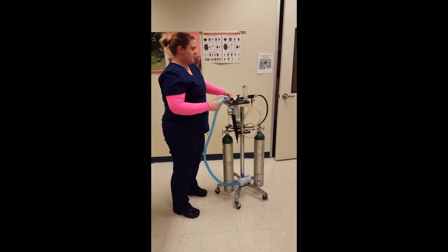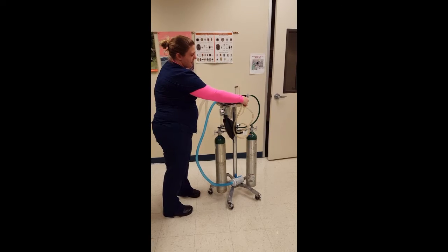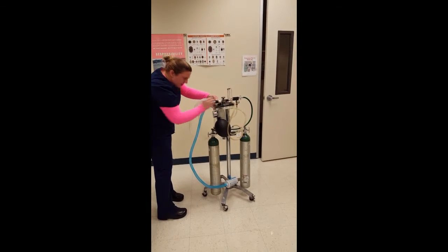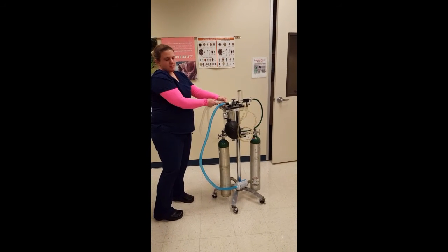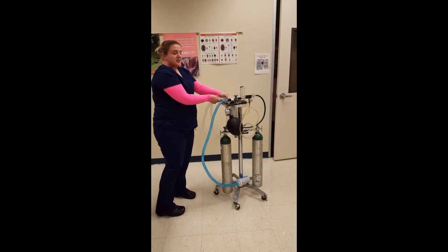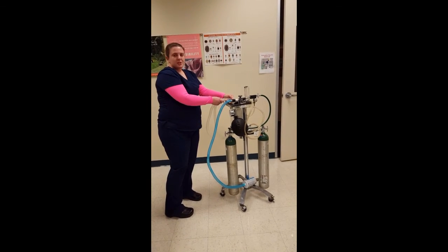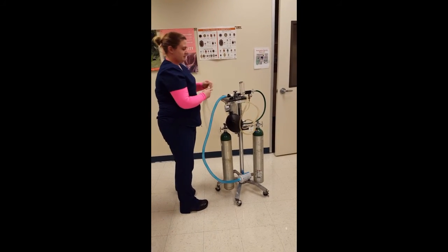You push down on the pop-off valve and let oxygen flow in until it's about 20, and then you wait 10 seconds, and you want the pressure in the system to remain the same if you hopefully have a good seal. And once that's done, you can let the pressure out of the system. Okay.